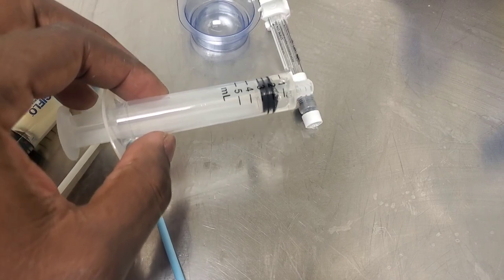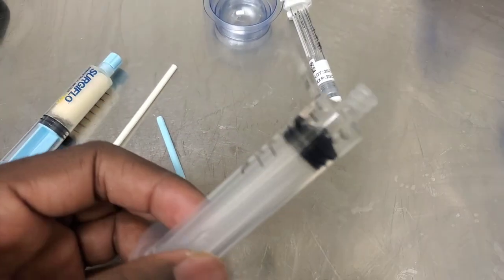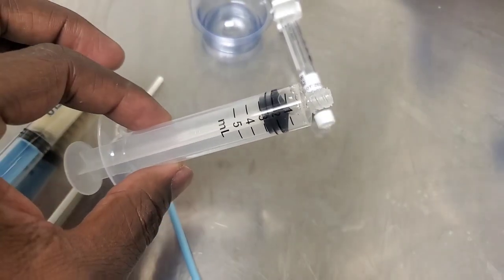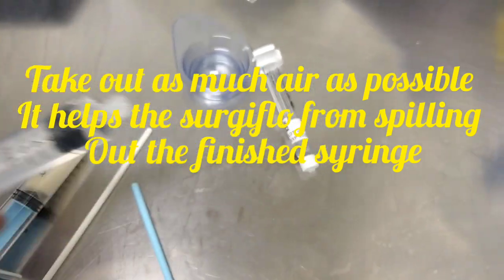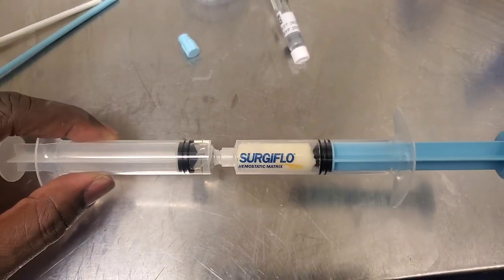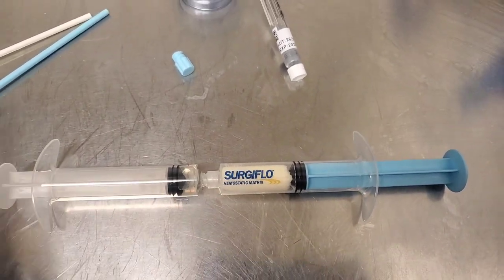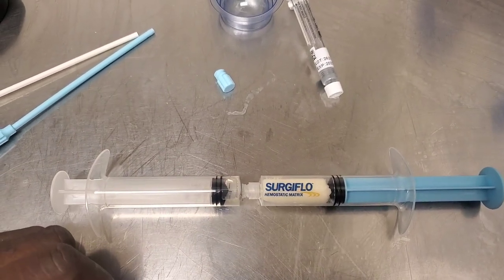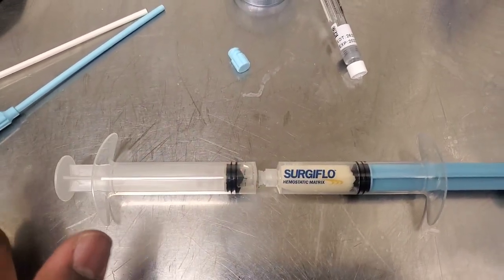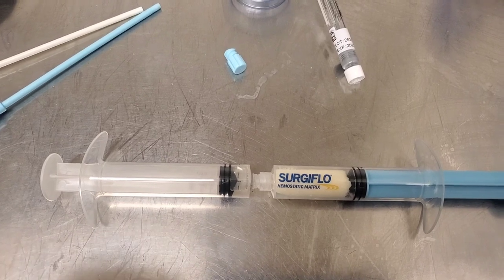So what I did was I extracted the thrombin from this syringe and put it into this syringe over here. I made sure to push up to get rid of any excess air. Now we're going to screw this syringe onto this syringe. Everything should look like this. Now all we're going to do is push these two syringes back and forth until you get a consistent, smooth feeling — about seven motions back and forth — and then you should be good to go.